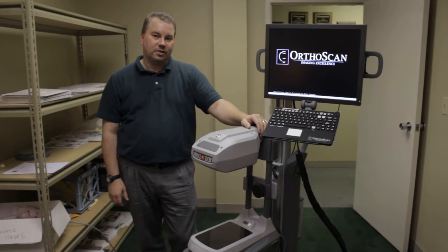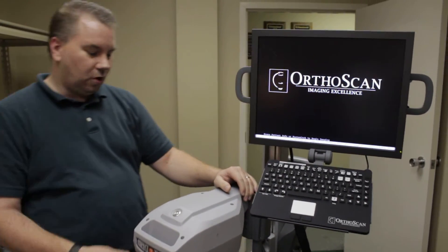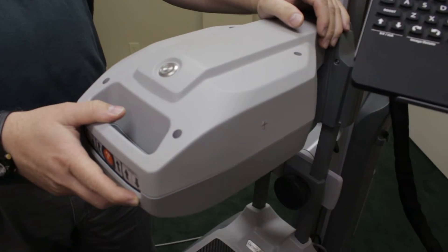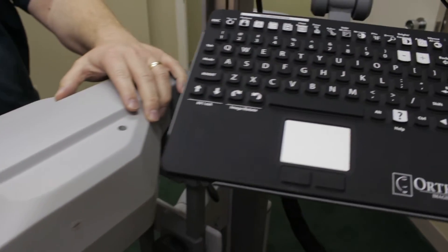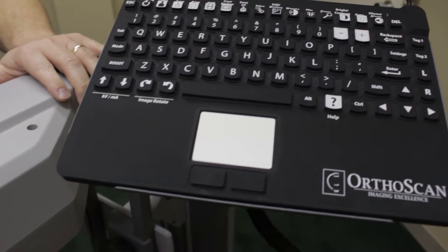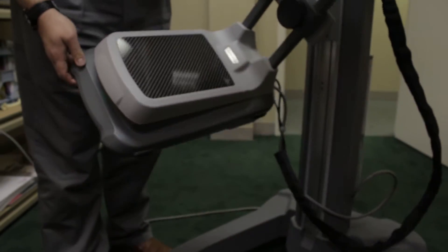Hello, my name is Dan Caden. I'm here with Mosier Medical and today we're showing the new OrthoScan Mobile DI Mobile Fluoroscopy Unit. This unit is designed specifically for small offices or small surgical environments where you can take this on the move. The great thing about this unit is it's specifically designed to be portable.